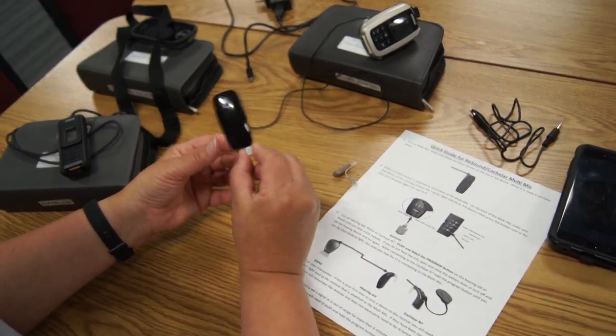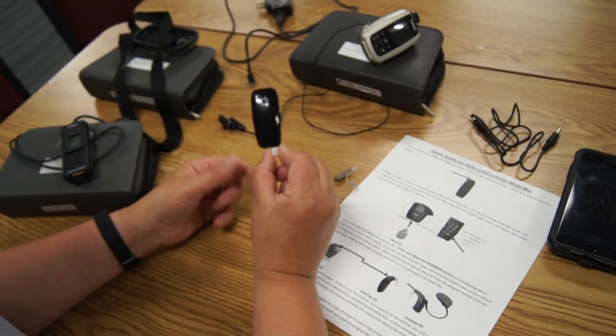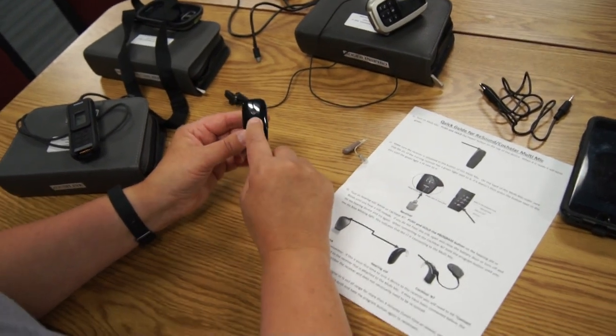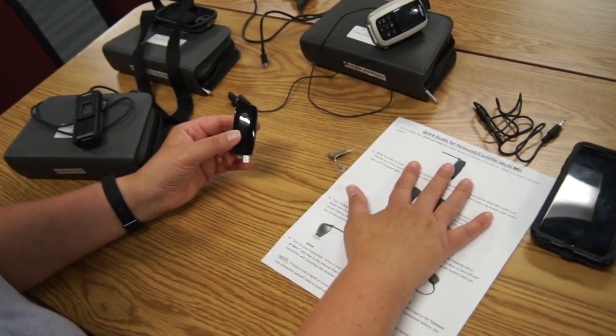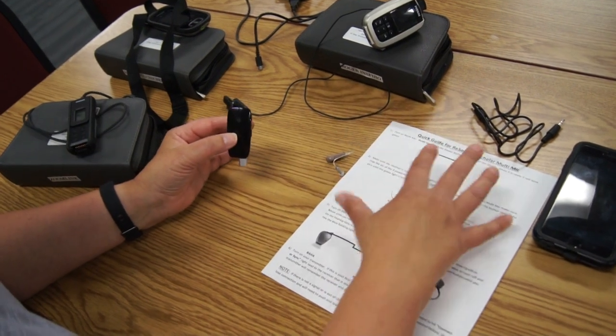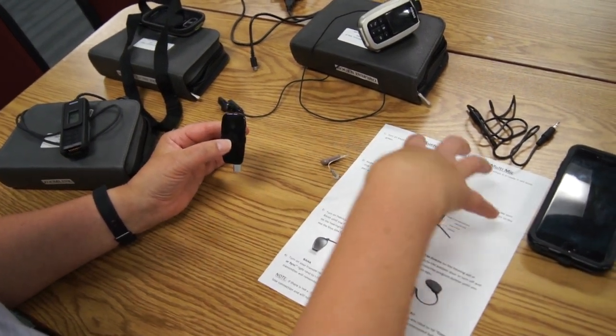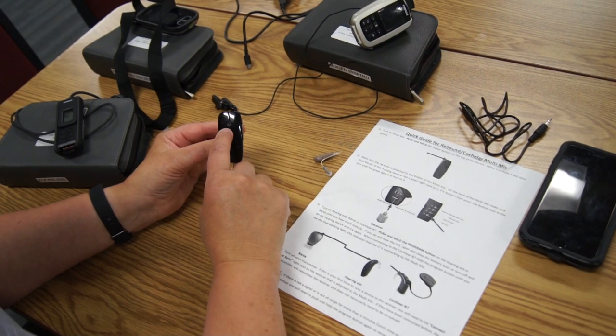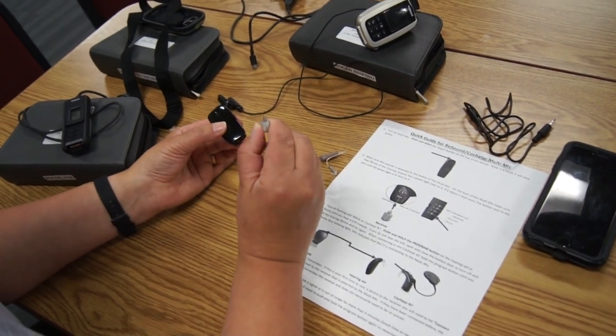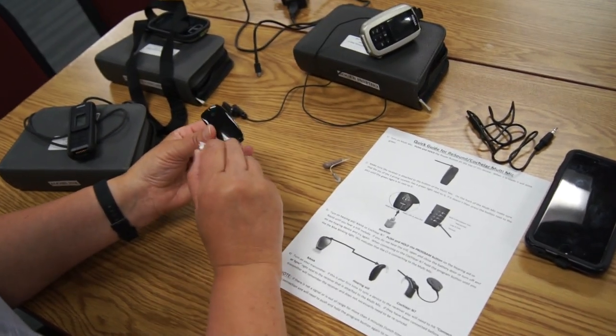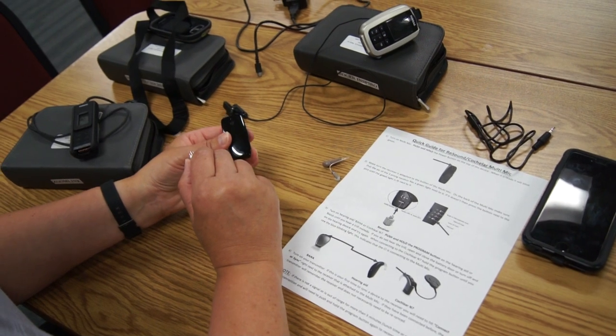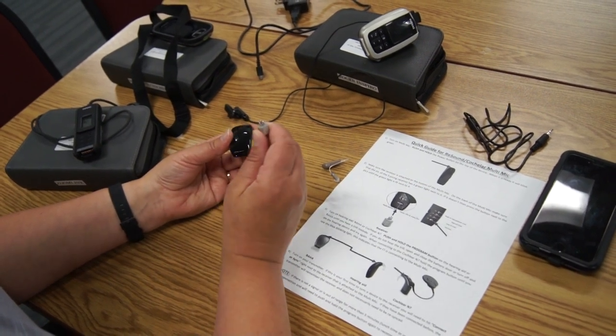Since this will stay at school, if you have a student that has their own device, it may be owned by the student. Then you will need to remove this piece if they're taking this home. If they're leaving their personal one at school, it can stay attached. You just have to make sure it's removed by the end of the year.